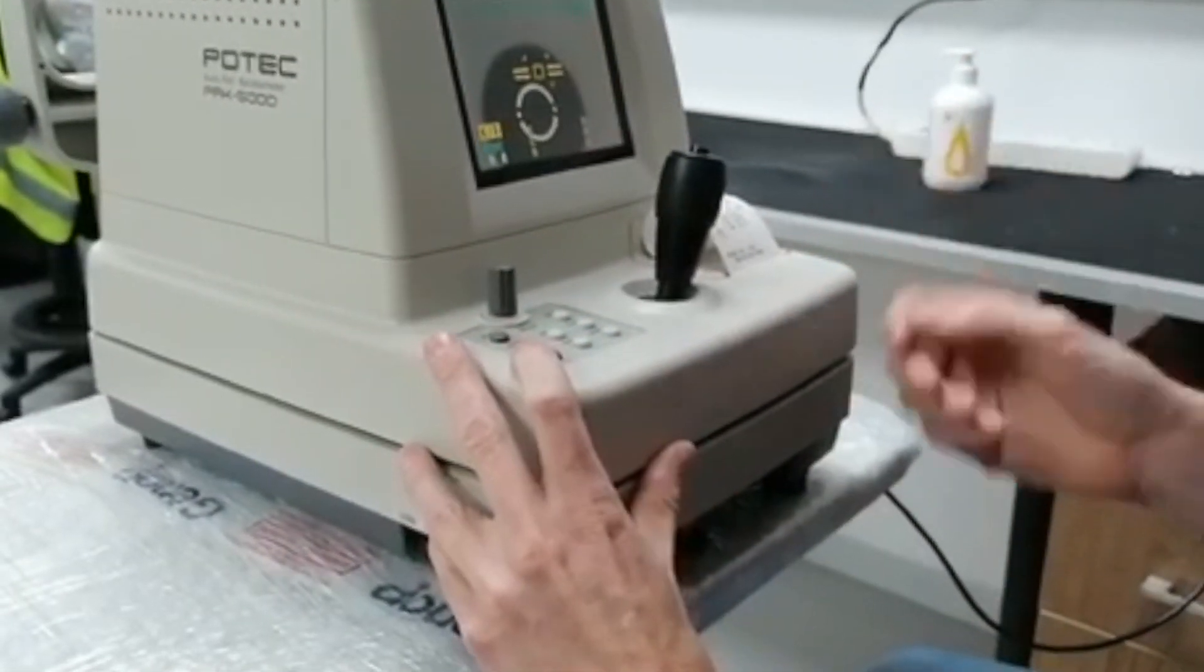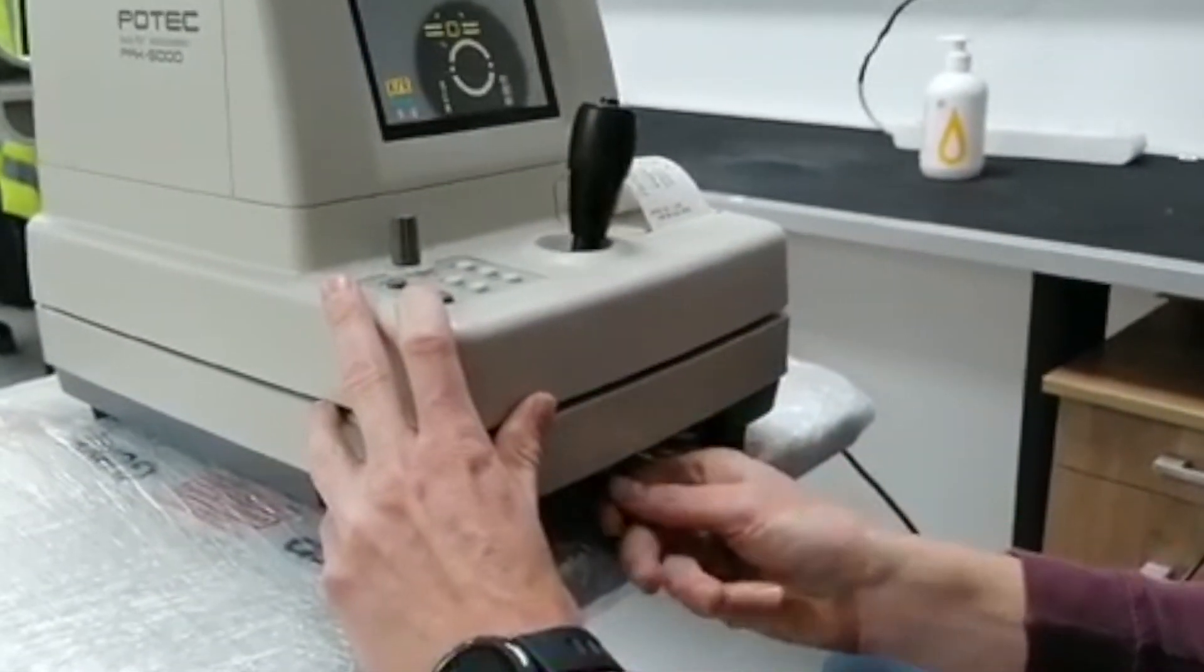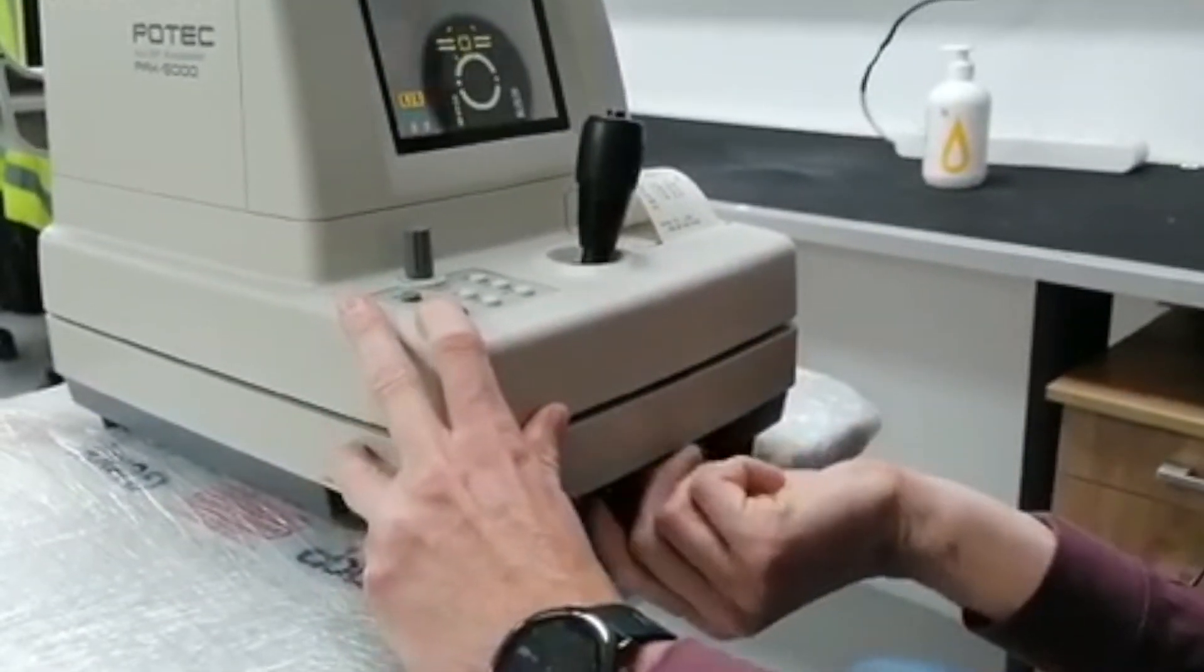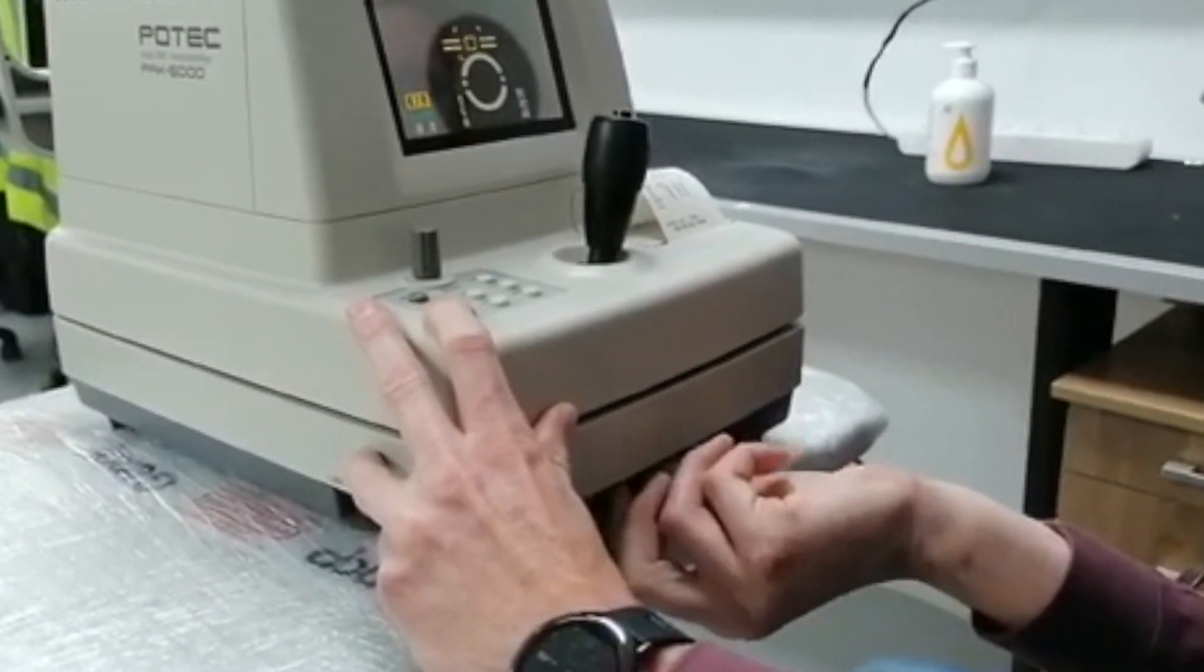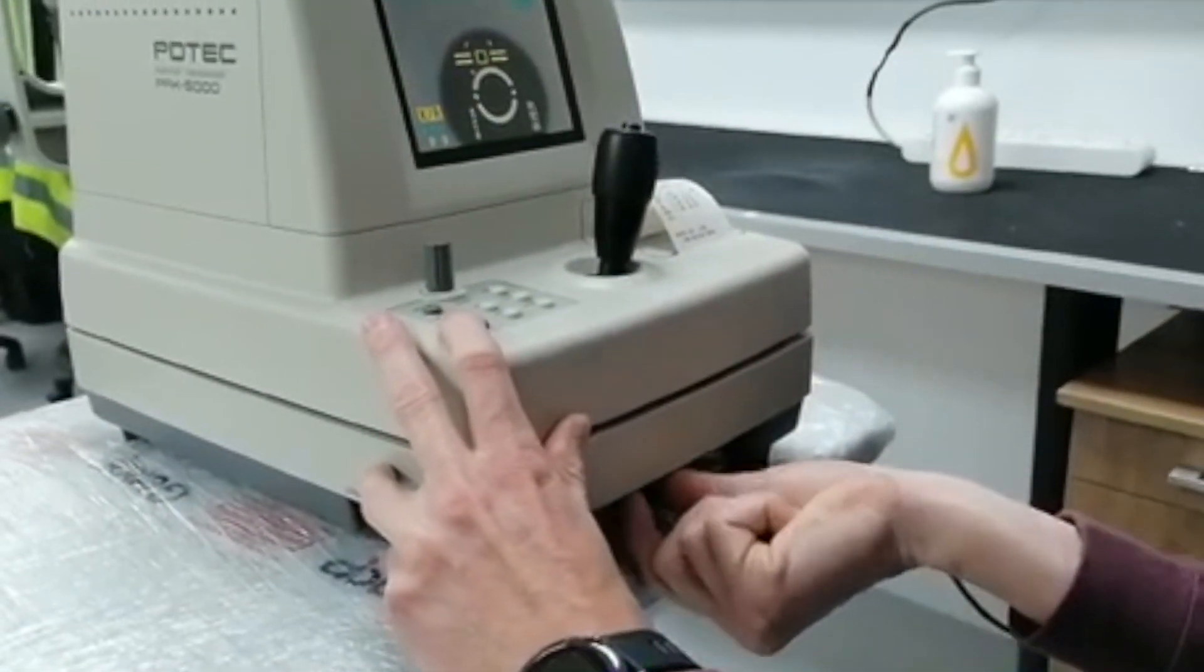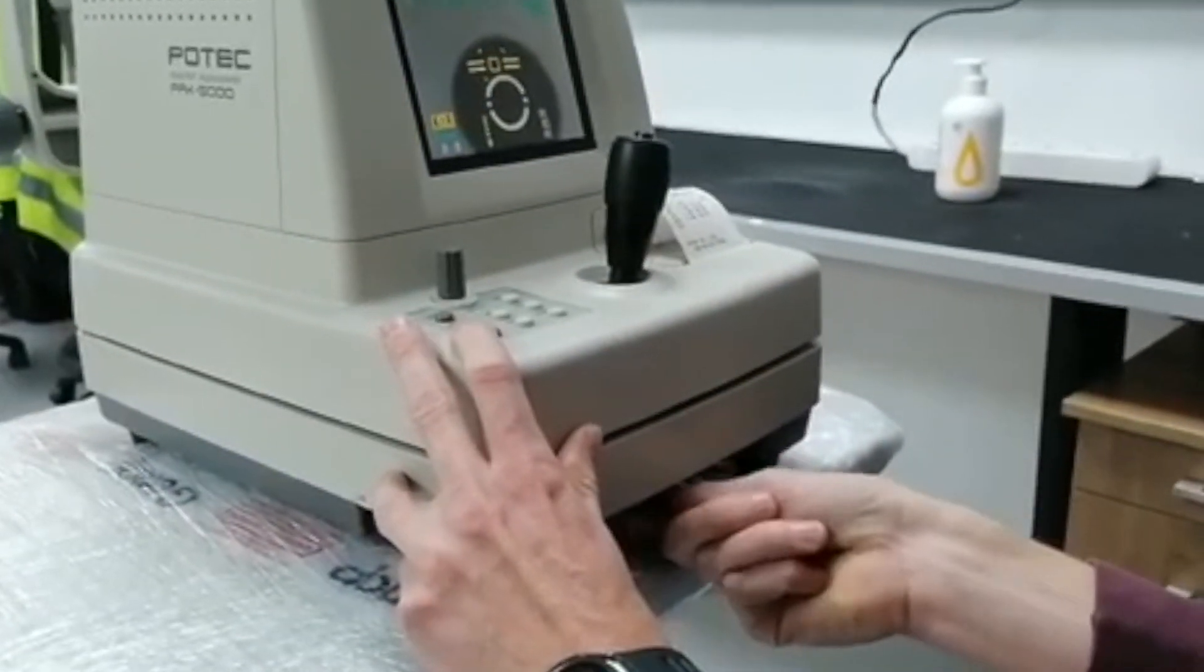Now we're going to do a little packing video. If you line this up here and you just screw this in, this is when you guys are going to ship it to us or you're going to be moving it via the box. Screw that in all the way, it's quite a long screw.